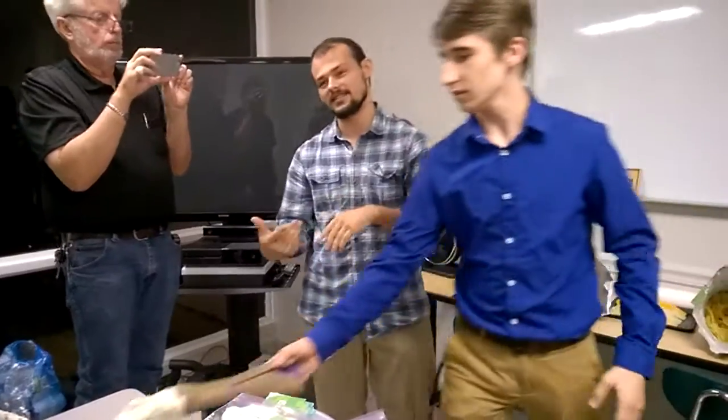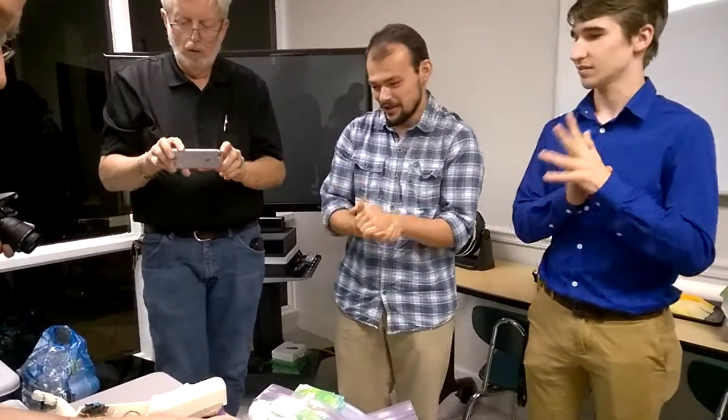That one has fingerprints on the wrist. The way that the fingertips lay on the build platform does create some geometries that mimic fingerprints. Unfortunately — or fortunately, depending on perspective — if we print 100 of these fingers, they'll all have identical fingerprints. Unless you change the slicing between each print, because every time you do a slice there's a chance you'll get a different pattern. So by recycling the same file, you'll get the identical fingerprint.